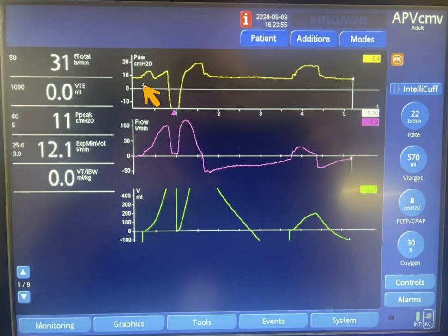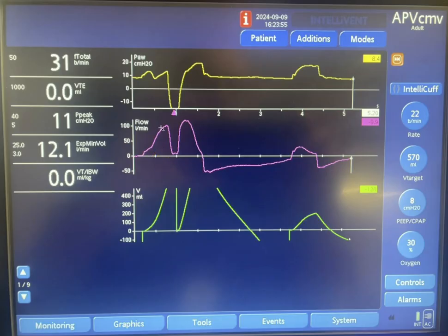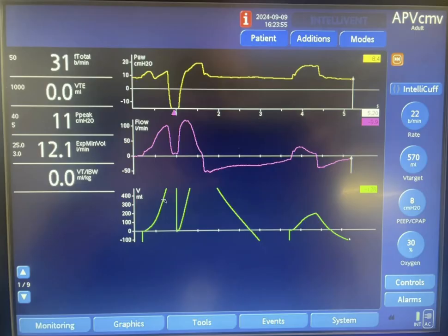This breath is time triggered — you don't see any negative deflection. This is the pressure utilized by the machine. The inspiratory flow went up to around 100 liters per minute before it starts to decelerate. As a result of this flow, the volume goes up — it looks like it reached 550 or 570 mL. You don't see the peak of it, but if you extrapolate the curve you can estimate it is around 550 or 570.